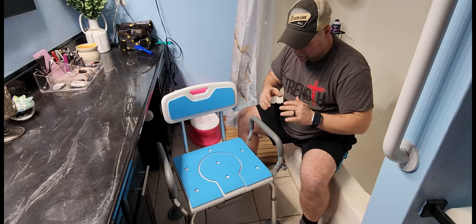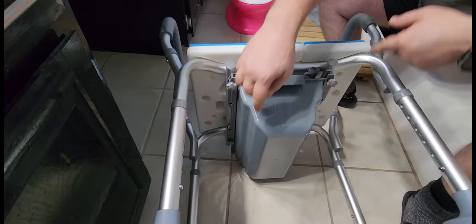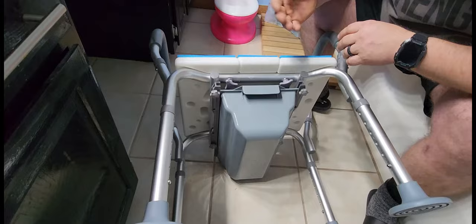There are a couple of things I want to point out when assembling the chair. These screws right here are really pretty tight — you've got four of them, and then four more of a different type. I put on a pair of gloves because it really hurt my hand trying to get them to turn in and get them snug. Just remember when putting it together that the screws are really tight and won't come out, so you may want to use gloves to protect your hands.